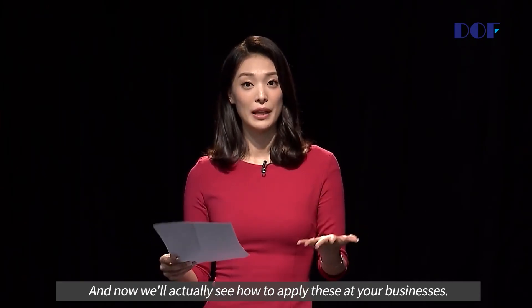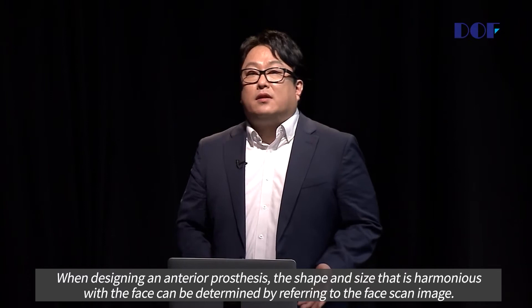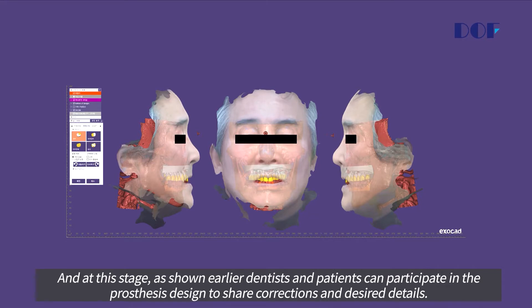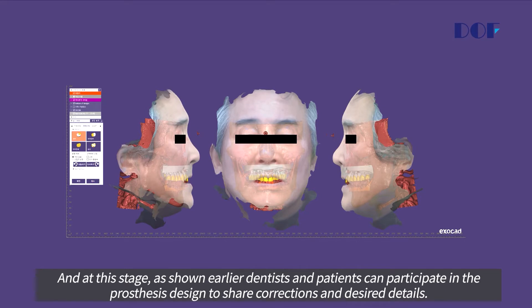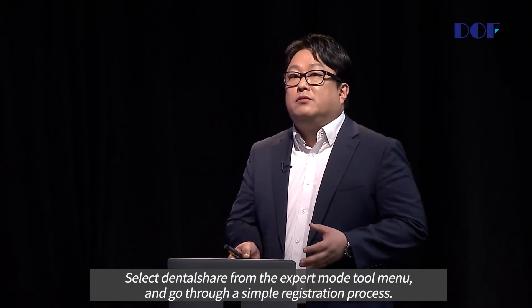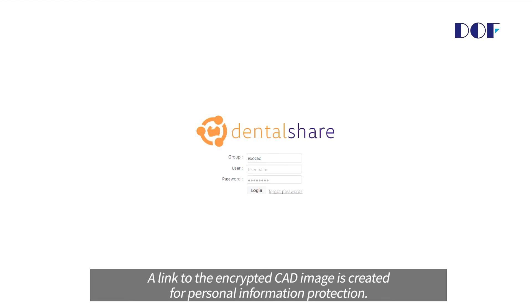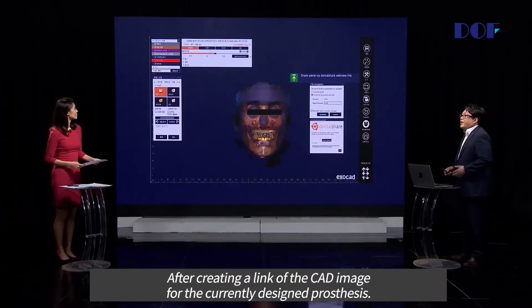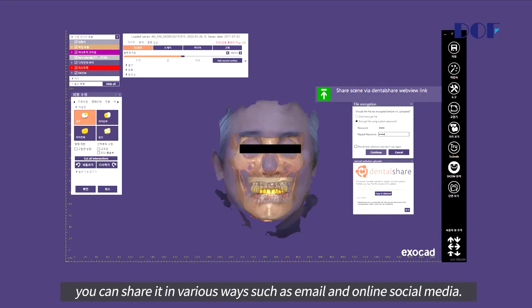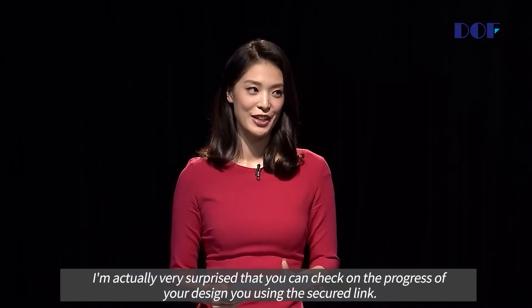Now we'll see how to apply these at your businesses. When designing an anterior prosthesis, the shape and size harmonized with the face can be determined by referring to the face scan imaging. At this stage, as shown earlier, dentists and patients can participate in the prosthesis design to share corrections and desired details. Select dental share from the expert module tool menu, go through the simple registration process, create a link for the CAD image for personal information protection, and after creating the link for the currently desired prosthesis, you can share it various ways such as email and online social media.